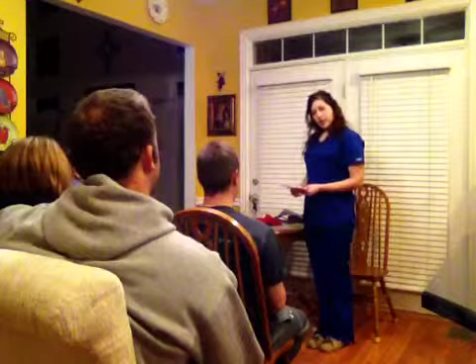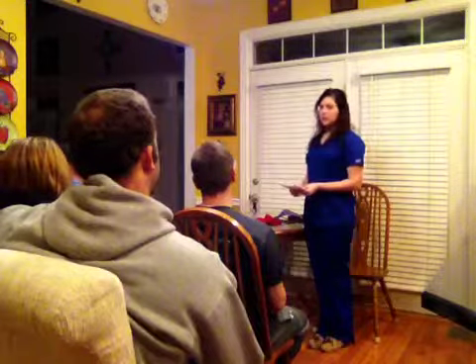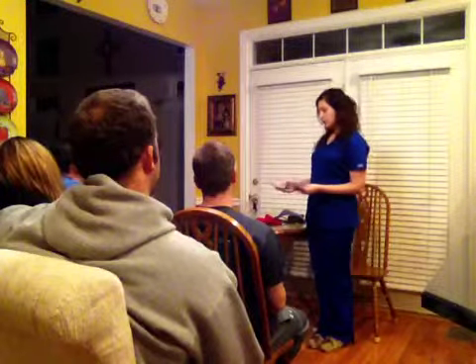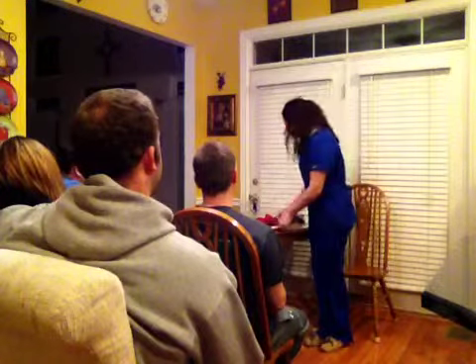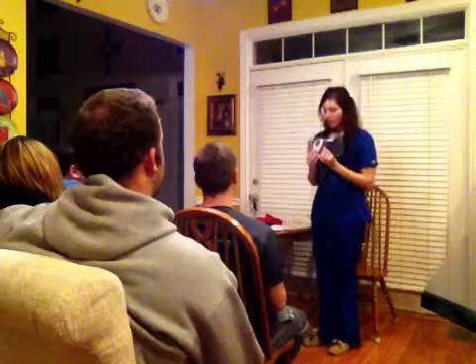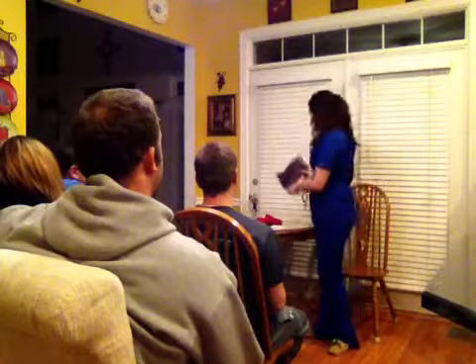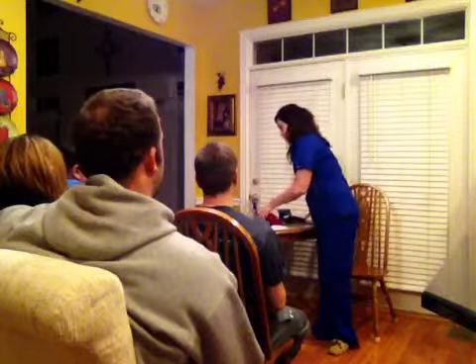Now that you've been educated on the physiological aspect of blood pressure, we will now begin the demonstrative process. First, I will show you the equipment that is used. You will need a blood pressure cuff that contains a dial and cursor, an inflation bulb, and a control valve. You will also need a stethoscope that contains the diaphragm and the bell.